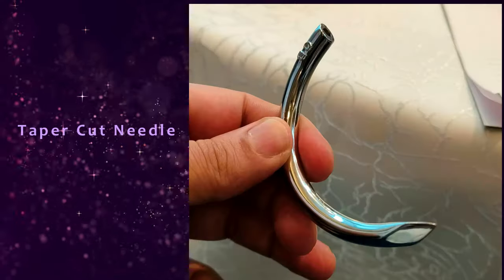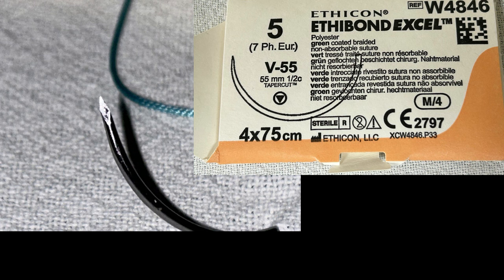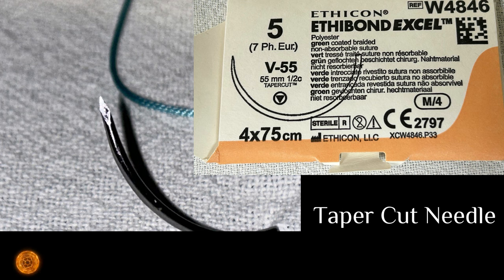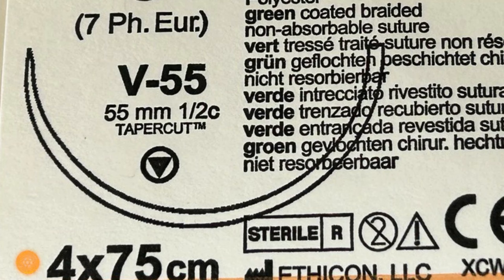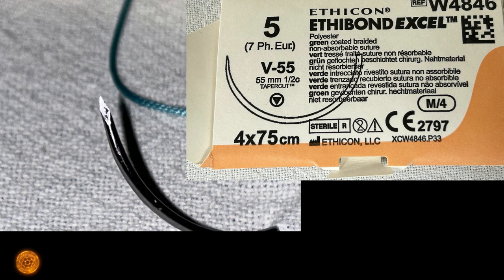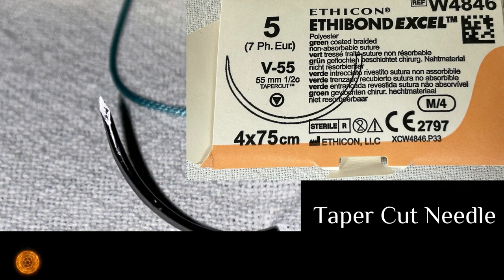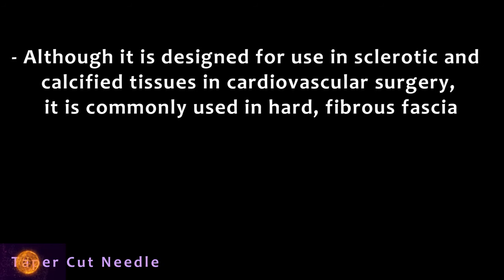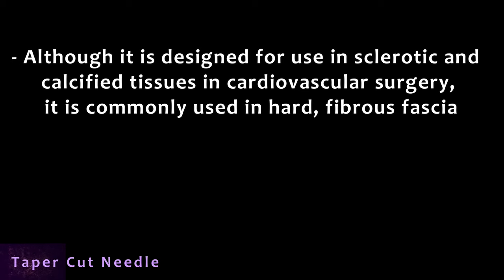Another important needle is the taper cut needle — this is the number 5 ethibond used during thoracotomy surgery, which we have already uploaded a video on. You can see the round circle with a triangular tip inside — these are taper cut needles. That is one of the strongest threads — polyester ethibond — and the maximum size you will get is number 7; this is number 5. A taper cut needle is a very versatile needle. Although designed for use in sclerotic and calcified tissue in cardiovascular surgery, it is commonly used in hard fibrous fascia that is difficult to penetrate. It penetrates with ease, and there is no damage because the rest of the shaft is a round body.